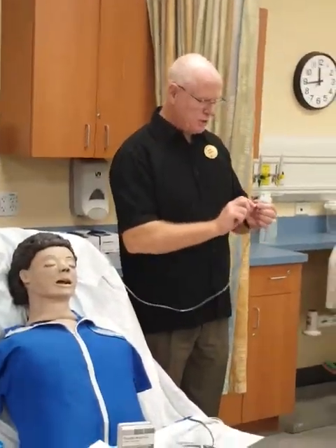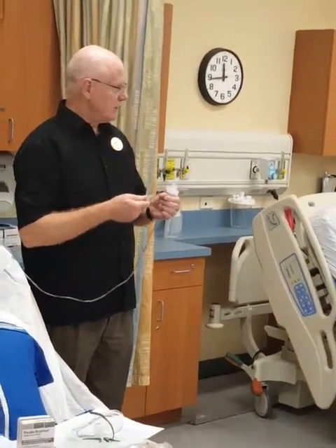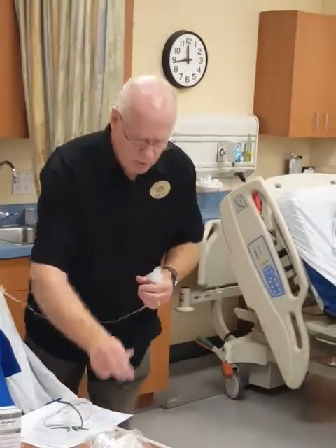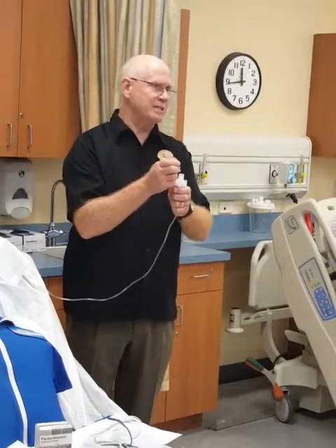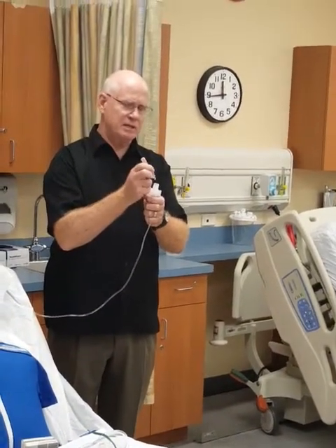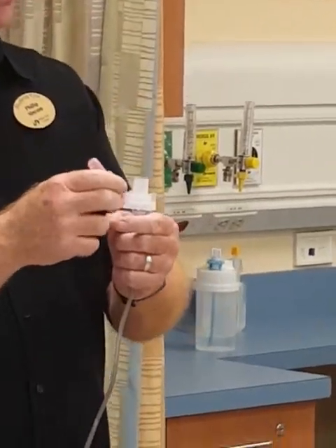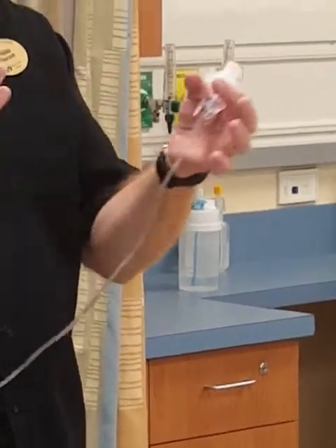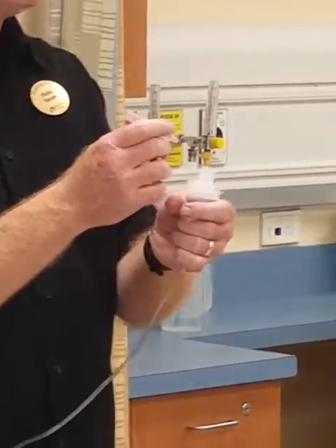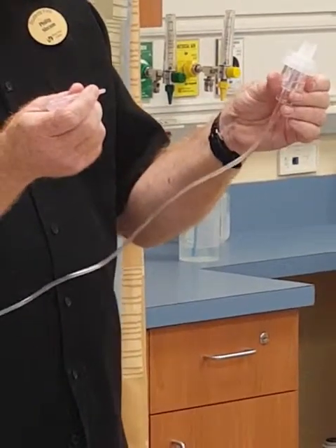They're usually in unit doses, so you're going to twist the top off. What we want to do when we put this medication in is we don't want to be touching the inside of this nebulizer. Just put your hand up against it to brace yourself and squirt the medicine right in. If you touch your glove to something and then go in there, you might introduce bacteria. So aseptic technique is simply: don't touch it to the side of this.